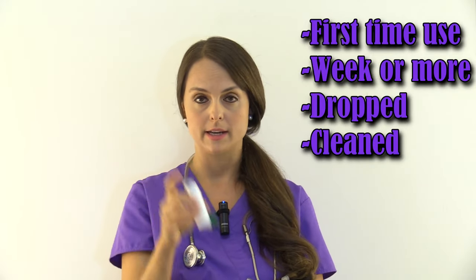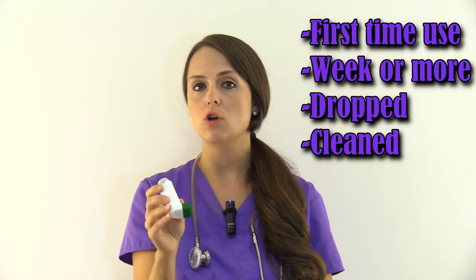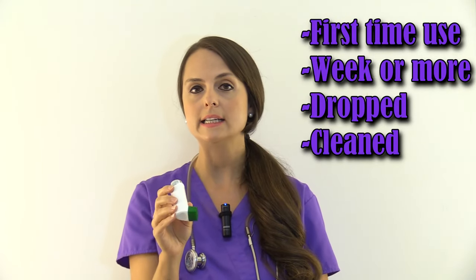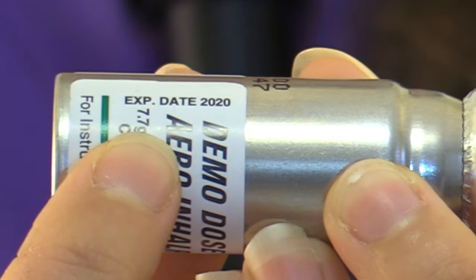Next, you want to prime the inhaler. Prime it if it's the first time it's being used, if the patient hasn't used it in a week or more, if it's been dropped, or if it was recently cleaned. Before priming, make sure the inhaler is in date and not expired. To check, gently pop the canister off — it will tell you the expiration date.